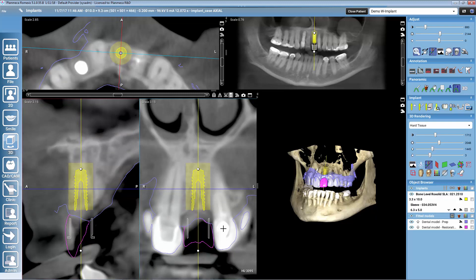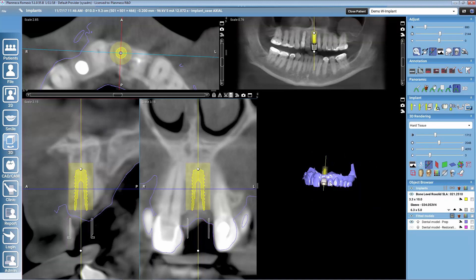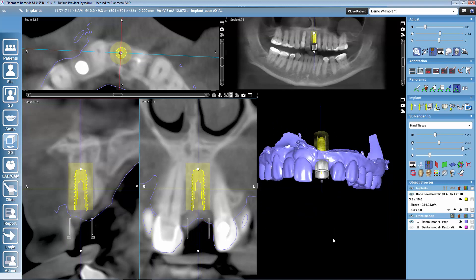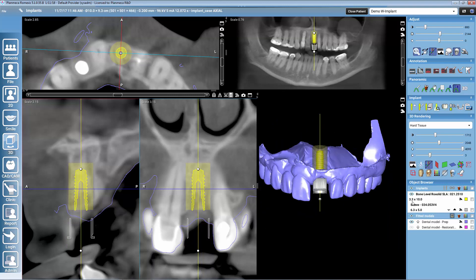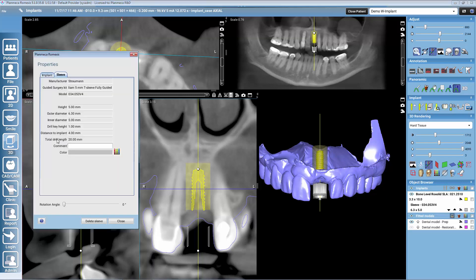Once we have found the good place for the implant, we can look at the sleeve. We can see clearly from the rendering that the sleeve is now entering a bit into the gingiva, so depending on the implant manufacturer, we might be able to adjust the position of the sleeve to different heights. Once we have selected the wanted height, we can also check from the sleeve properties the needed drilling length.